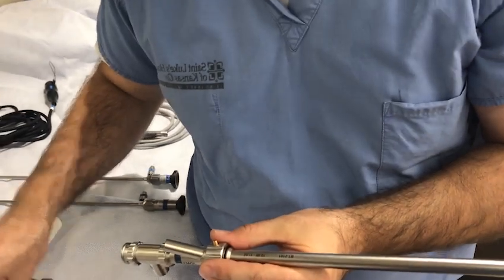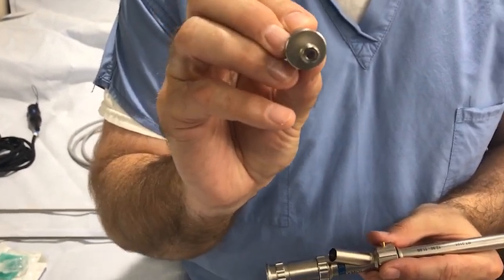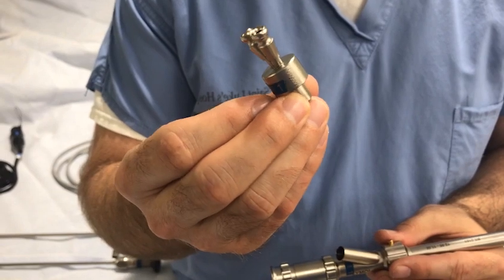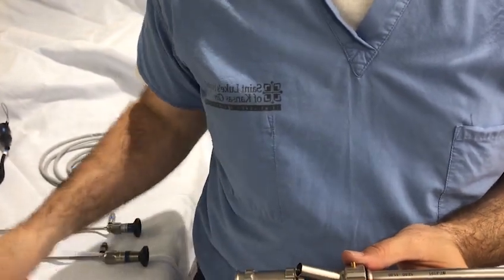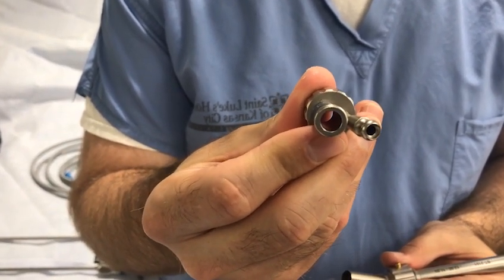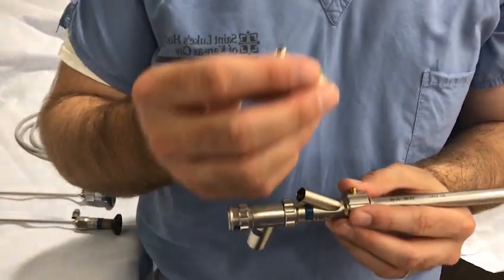There are various types of instrument accessory ports that can be used: a single port accessory adapter, a double port accessory adapter, and a telescope plus instrument port adapter. Once you have chosen the type of accessory port needed for the procedure, attach it to the instrument barrel. A single port has been chosen in this example.